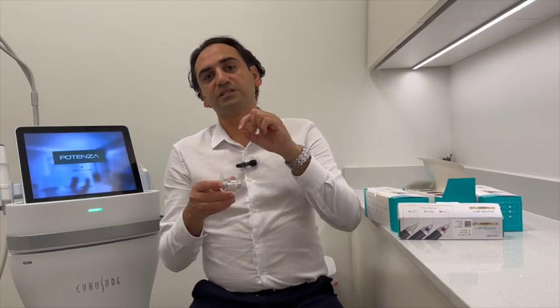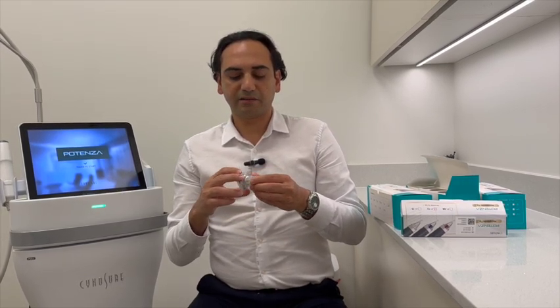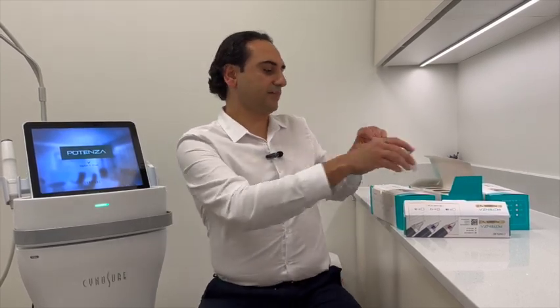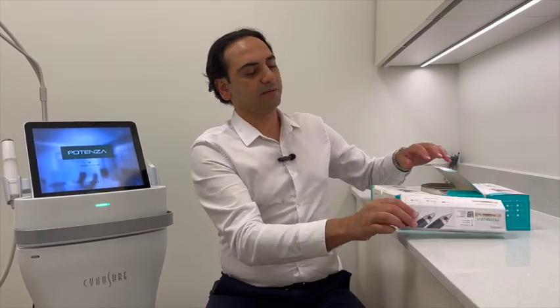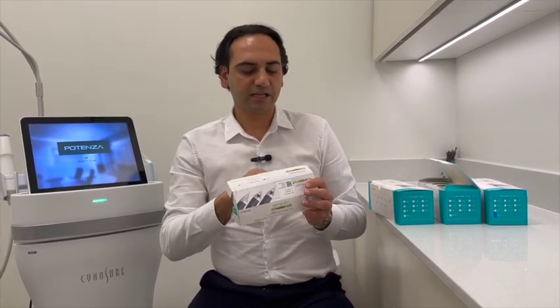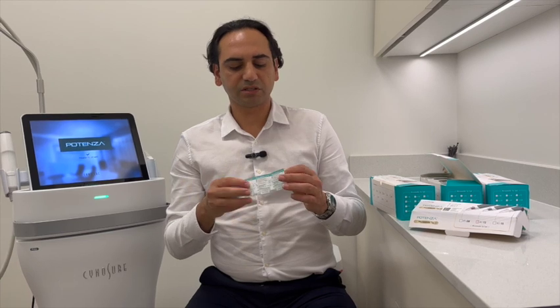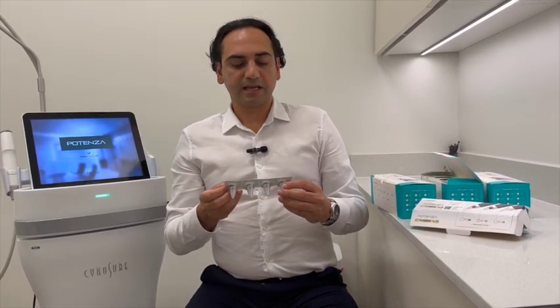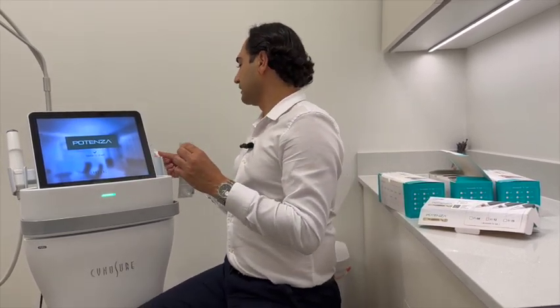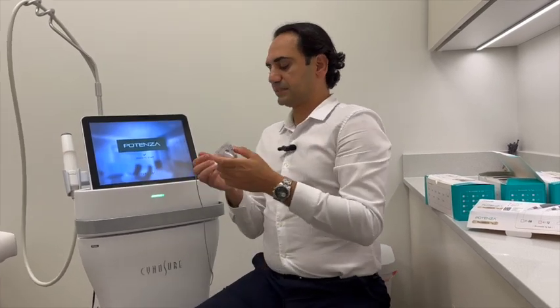The energy is emitted through the tip of the needle. This is safer in darker skin and when we are more cautious about damage to the superficial layer of the skin. The other tip that we less commonly use, but which is very interesting and specific to the Potenza by Cynosure — we don't see it much in other RF microneedling systems — is the A-tip. The A-tip is technically just a single needle and goes on a different handle compared to the other tips.